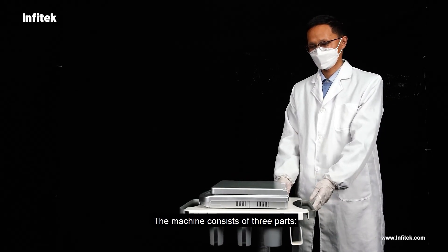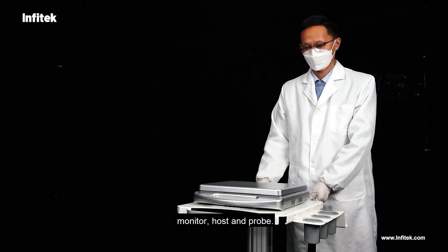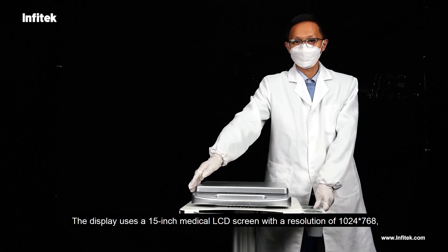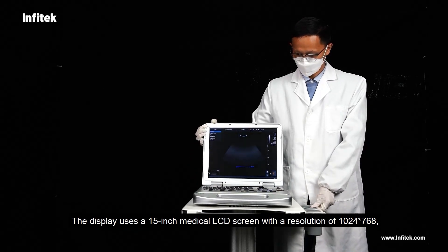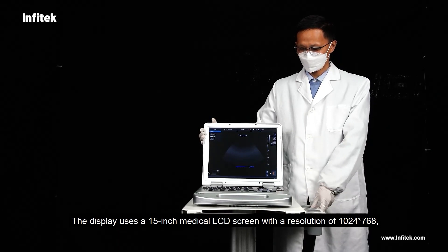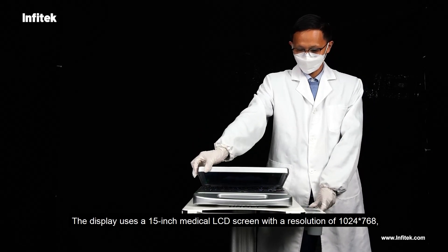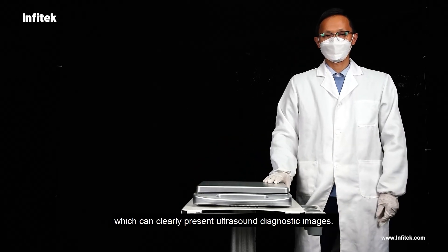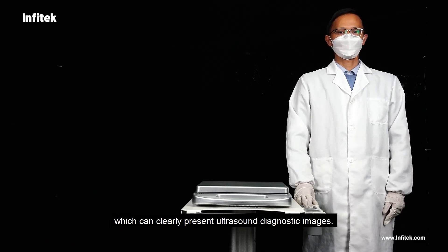The machine consists of three parts: monitor, host, and probe. The display uses a 15-inch medical LCD screen with a resolution of 1024 by 768, which can clearly present ultrasound diagnostic images.